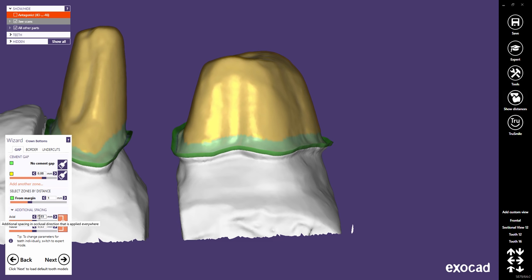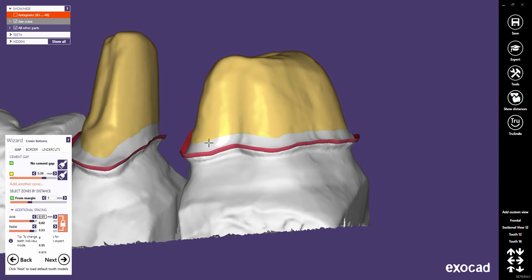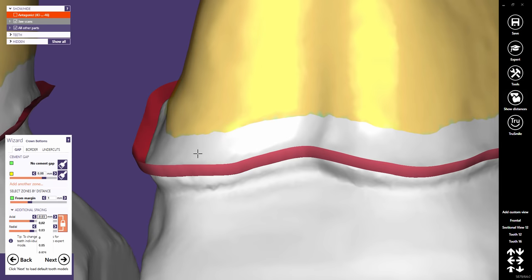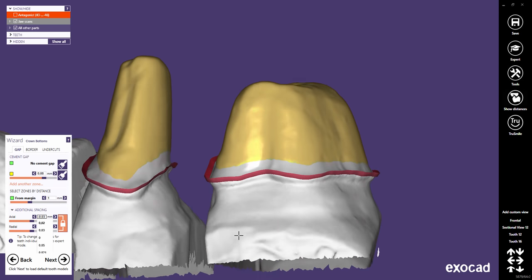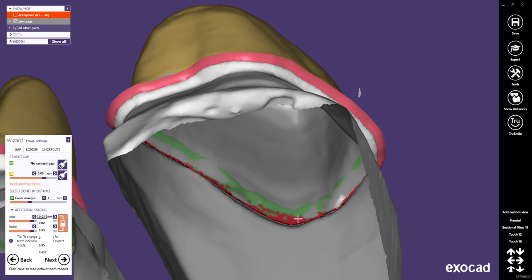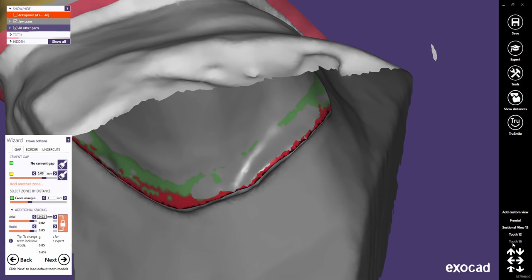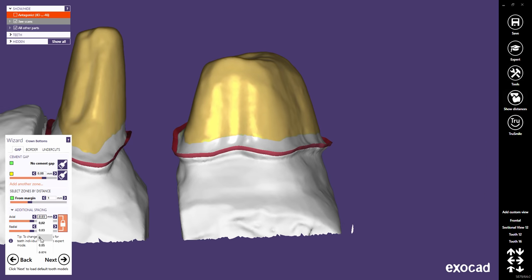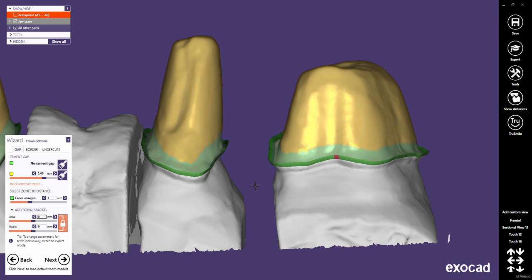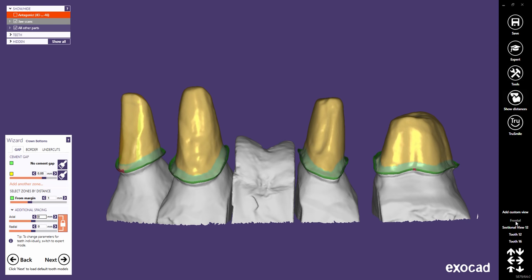You can also use negative values to create a tighter fitting. The result would be a crown that has a smaller bottom than the die. Note that negative settings may lead to manual work on the restoration. However, trying to improve the fitting by changing the additional spacing values is a workaround, not a solution. A properly tuned CAM system should be able to achieve good fittings with minimal additional spacing.